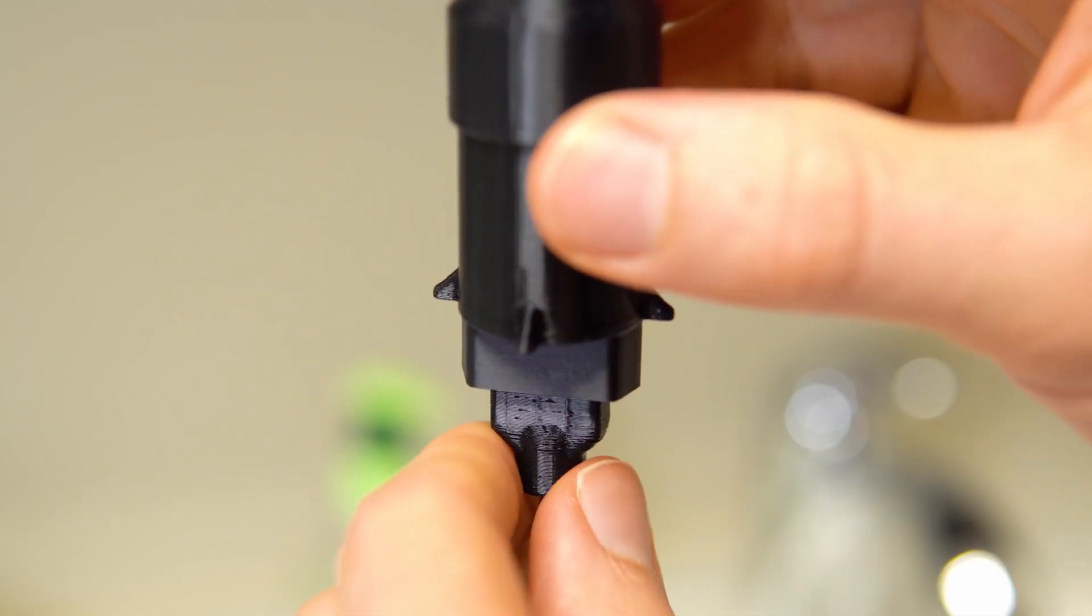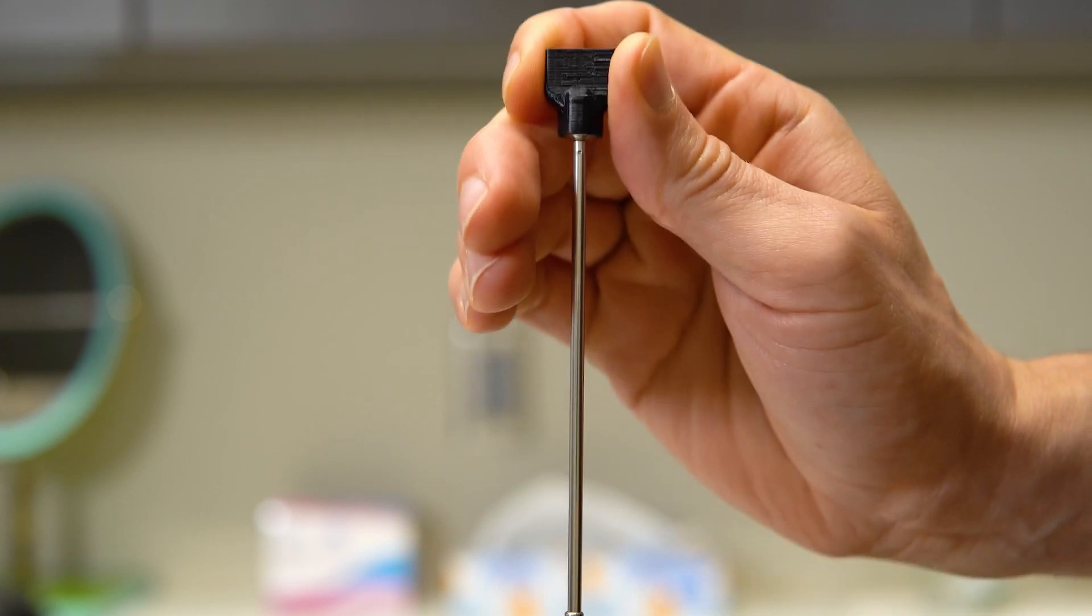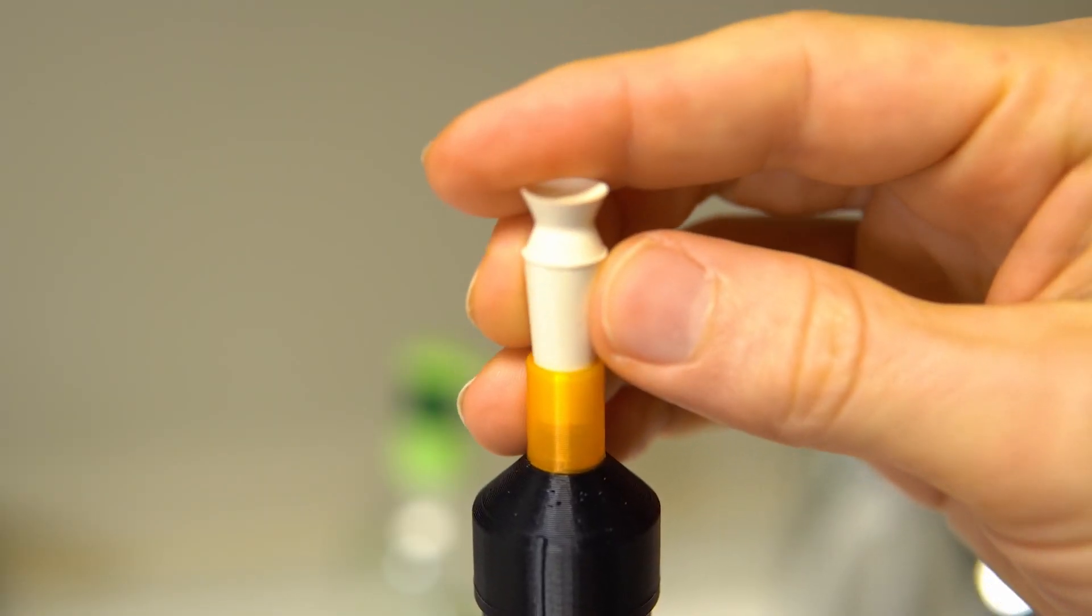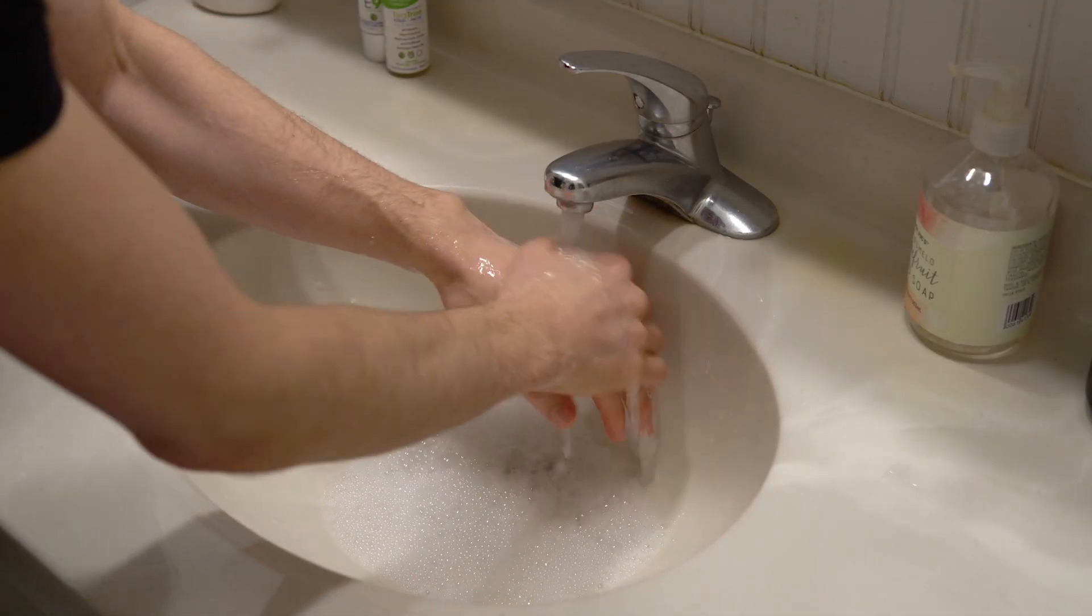If using the standard S5 inserter, extend the telescoping arm to the desired height and connect the light unit to the top of the telescoping arm. Step four: connect the rubber lens holder to the top of the light unit. Step five: now wash your hands with soap for 20 seconds and dry them with a lint-free towel.